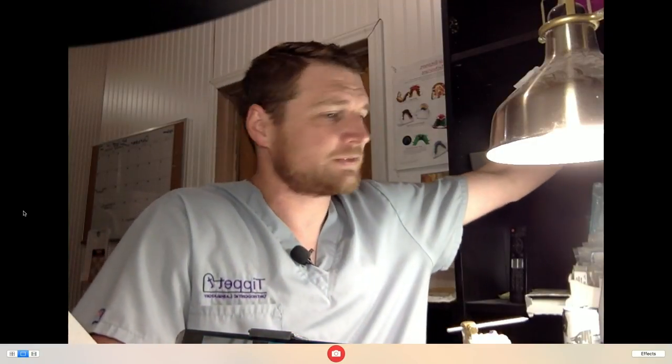This week I'm going to do a video and, as you saw from the title, it's going to be a gelb splint. I haven't done a gelb splint in a while. You know how I love to live stream these things with no practice — we'll see if I crash and burn or if I'm a success, but you get to see it live and that's the fun of it.